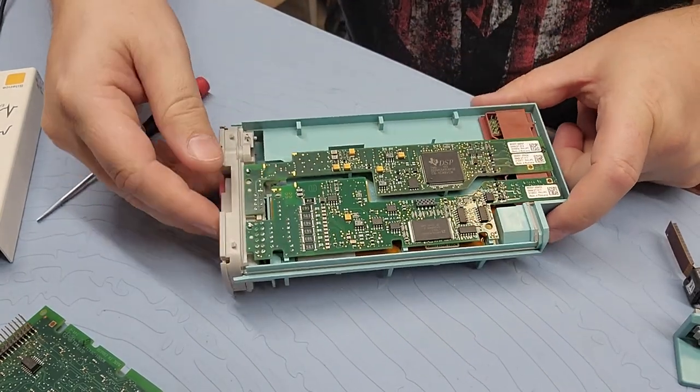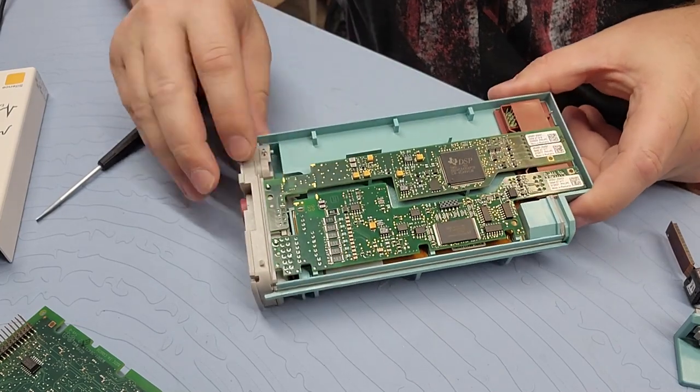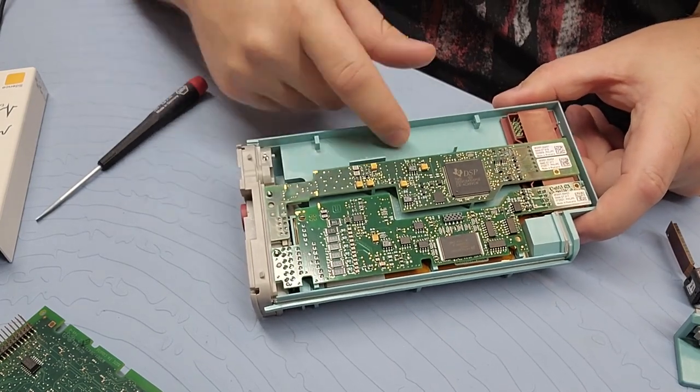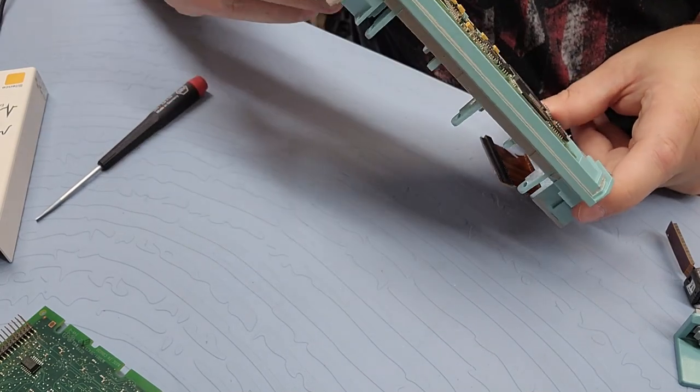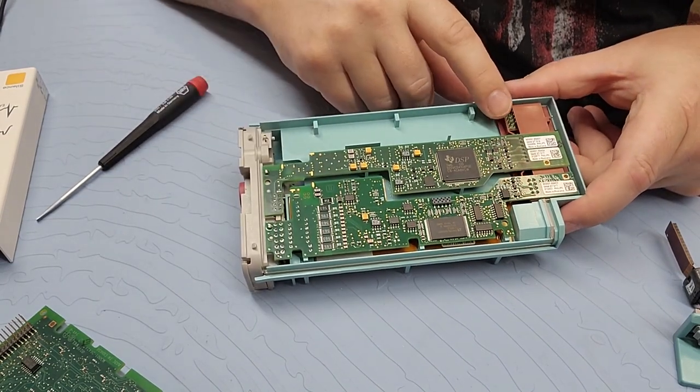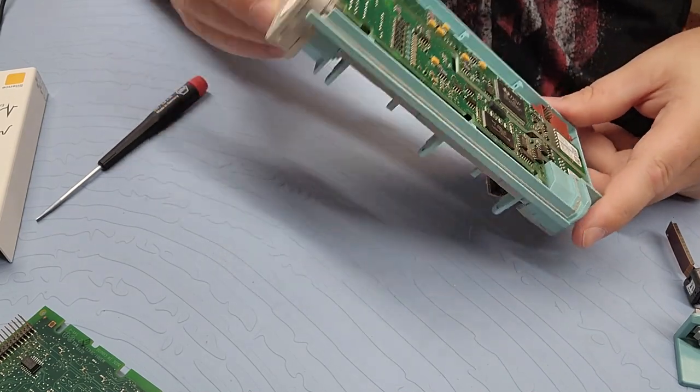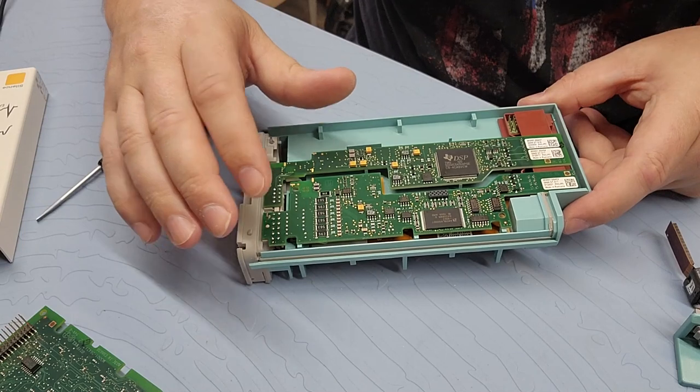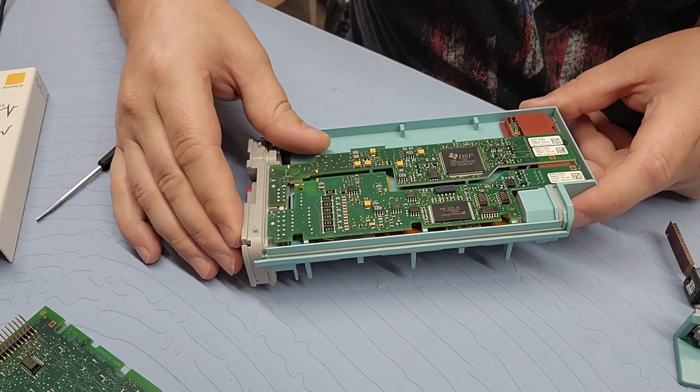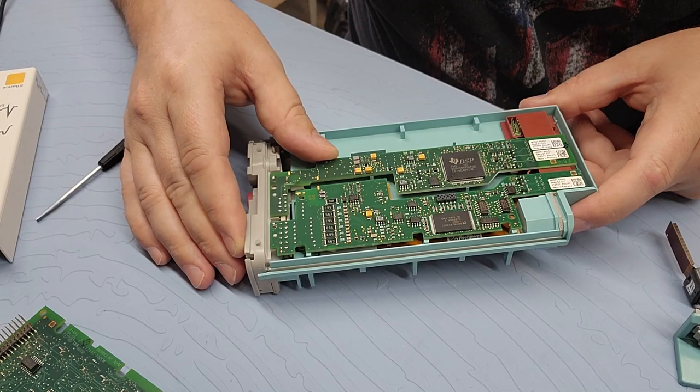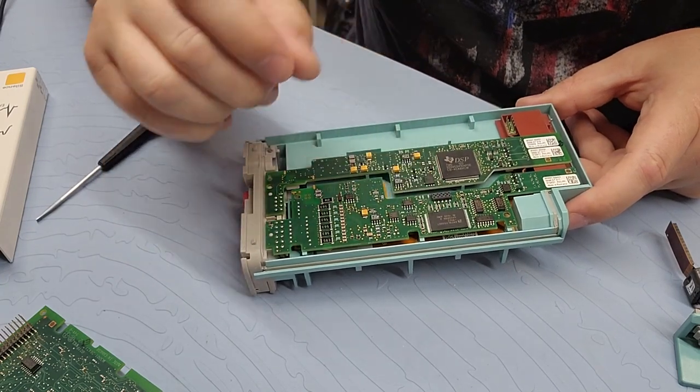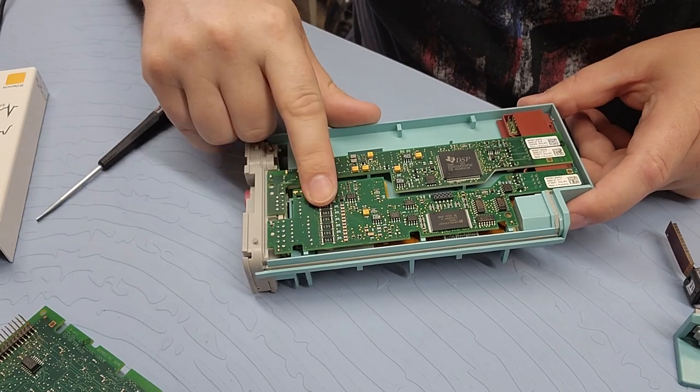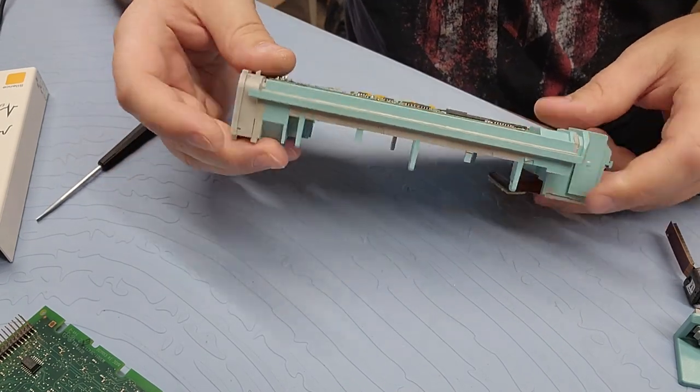Okay. The big reveal. What is on the back side? Alright. So, here are your option boards. And you can see I'm missing the option for the arterial. That's okay. Interesting enough, I wonder if it's possible to just upgrade it. Who knows. But if you have a problem with your ECG, this right here is the actual board. And from what I can tell, that is normally a ROM. I don't know. Let's see if I can pull those out. That would be so cool. I've never pulled these boards out of here before.